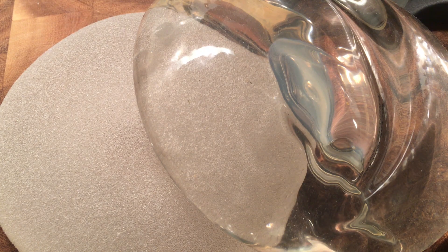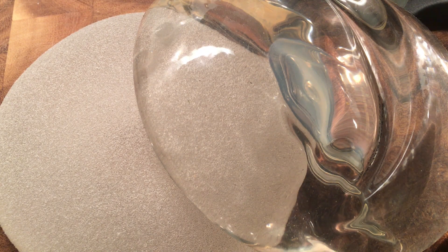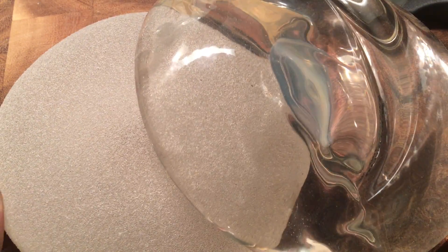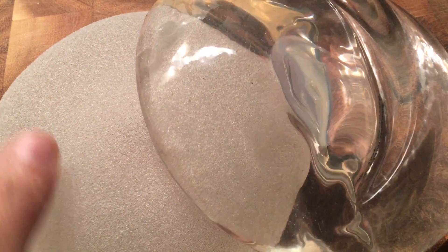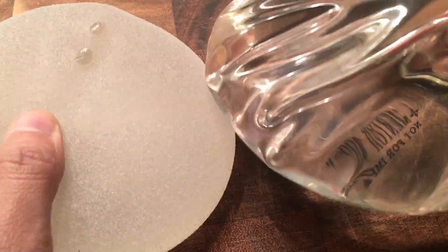Hi, this is Dr. Nina Naidoo. Today we are going to cut open some implants. I've been promising a few of my patients that I would do this so that way you could actually see what's inside these two implants.